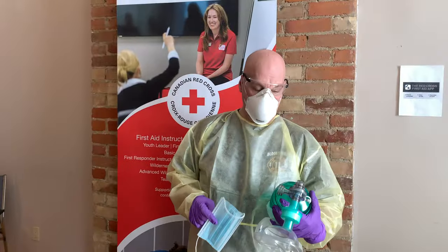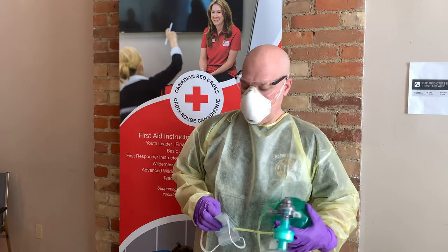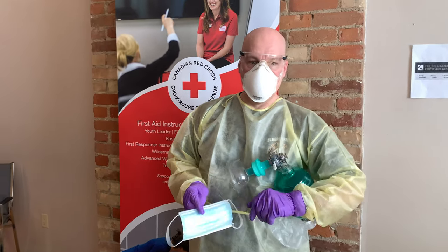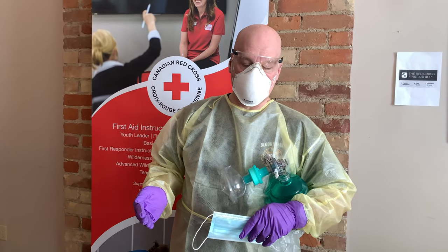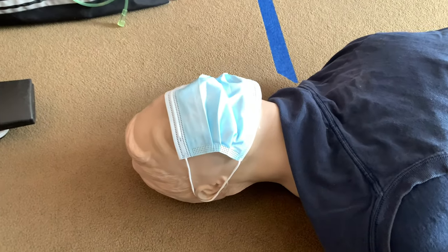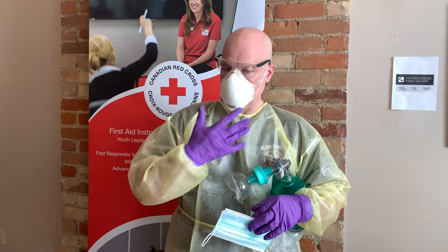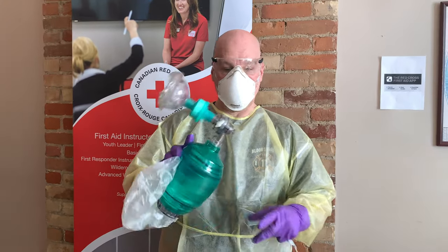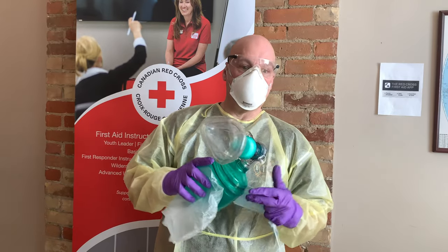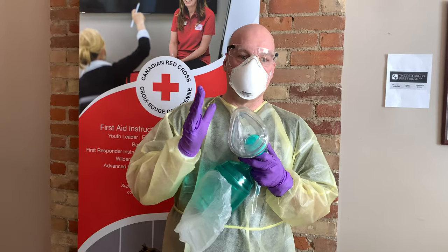Something very important to note: we are currently in a global pandemic — COVID-19. Extra precautions need to be taken when performing patient care for these types of illnesses. If you are performing compressions on a patient, it is suggested that you put a surgical mask on your patient to prevent any of their droplets being expelled into the atmosphere. Your personal PPE is also important. When using a bag valve mask, having a filter on it is essential, and the BVM face piece should remain on the patient's face at all times.